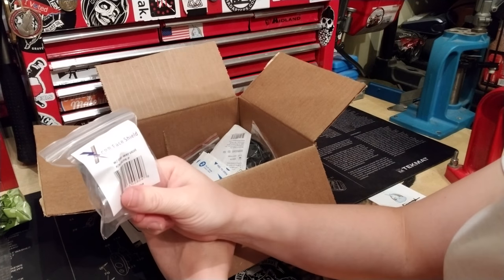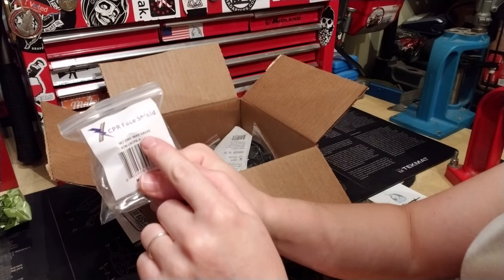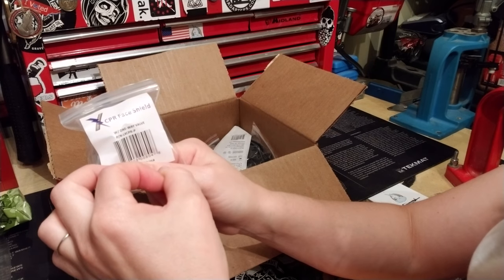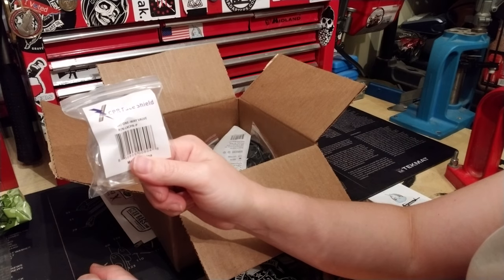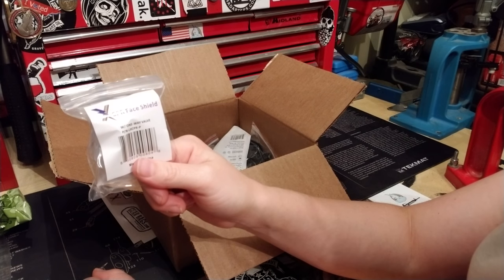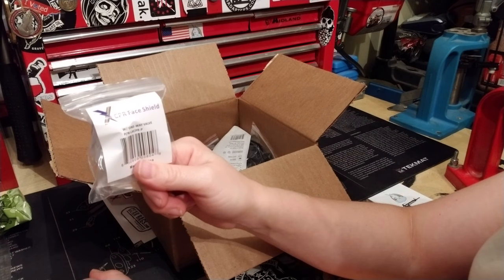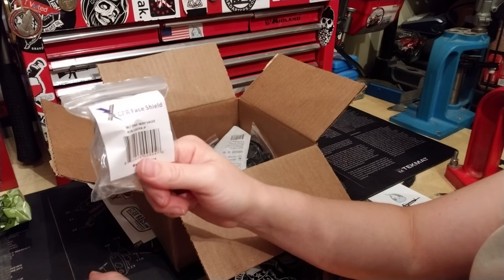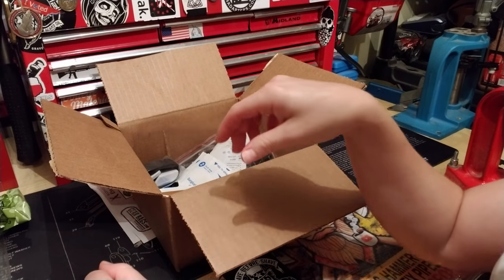This is really cool — a CPR face shield, which you don't see in too many kits. It has a one-way valve; you place it over the face with a spigot over their mouth and blow. It's a good barrier against blood or vomit spewing back at you. Without a face shield, you're only getting chest compressions.